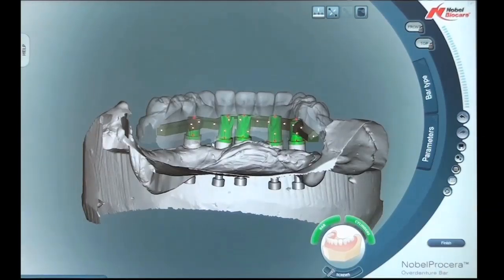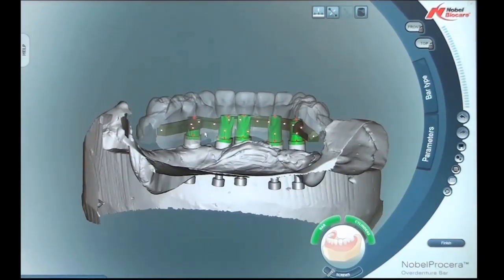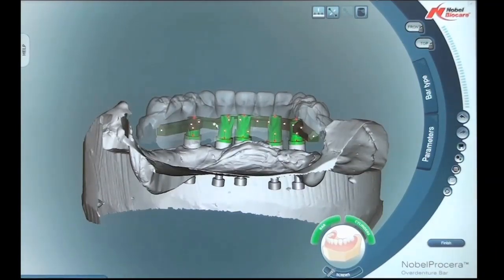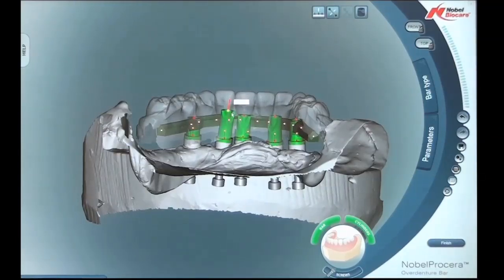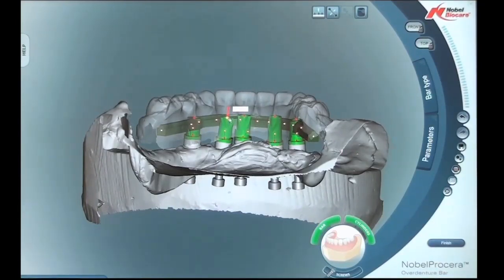Every denture setup is uniquely different and the interclusal space will vary with each case. In this particular case there is quite a bit of interclusal space and we can make a very ideal bar. But in many instances the interclusal space is very limited and it makes the case a little bit more complicated. We're also able to click onto the cylinder and adjust the vertical height of each cylinder in reference to the bar height.